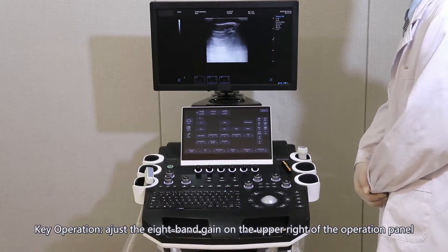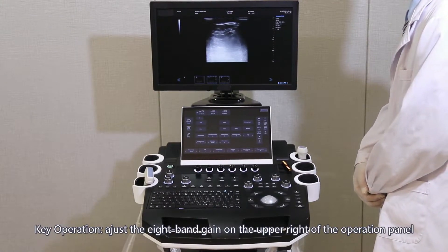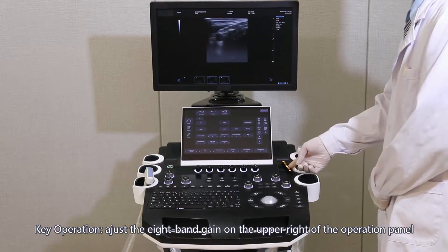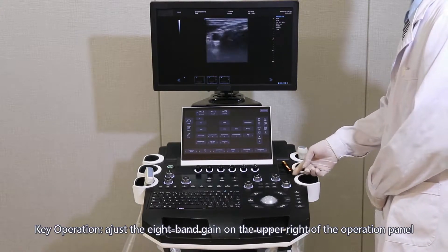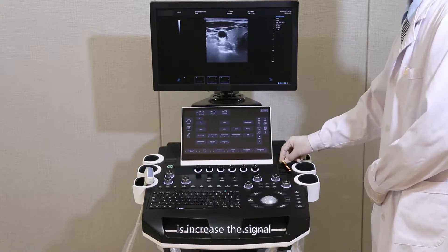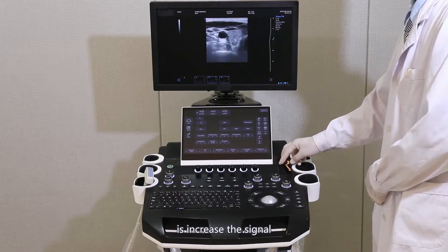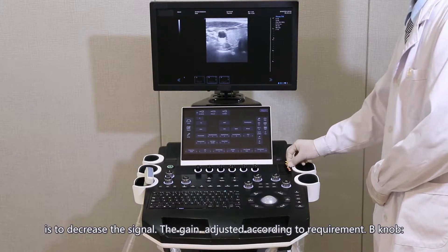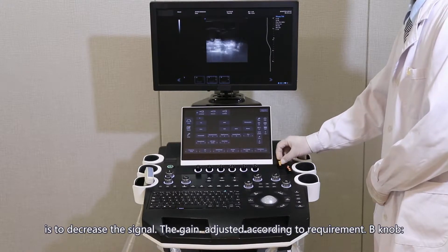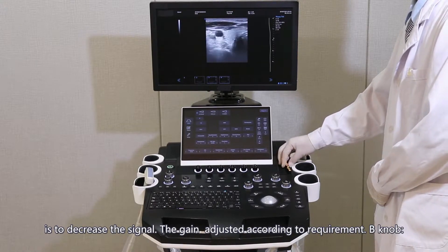Key operation — cursor: adjust the eight-band gain on the upper right of the operation panel. Right is to increase the signal; left is to decrease the signal. The gain is adjusted according to requirement.